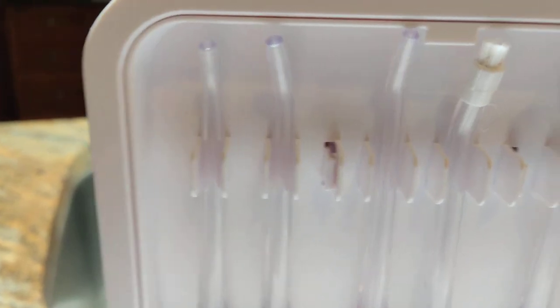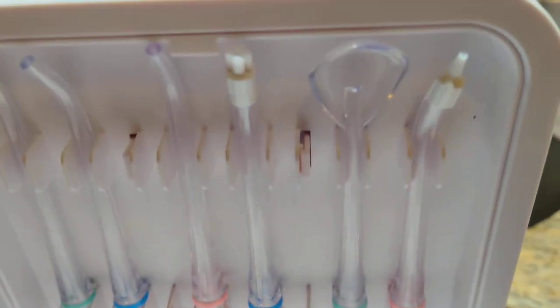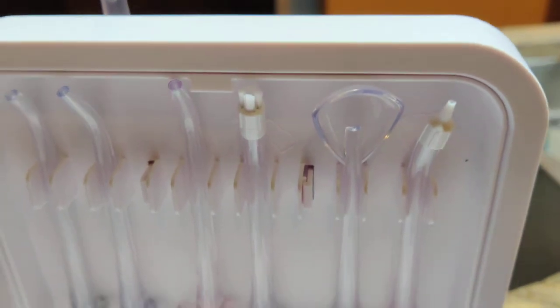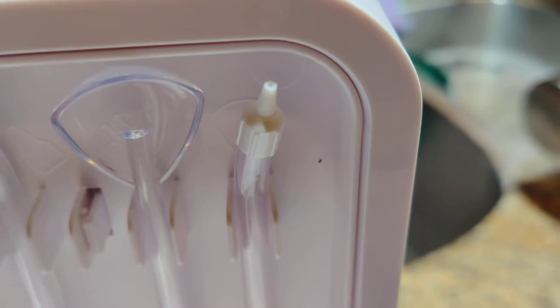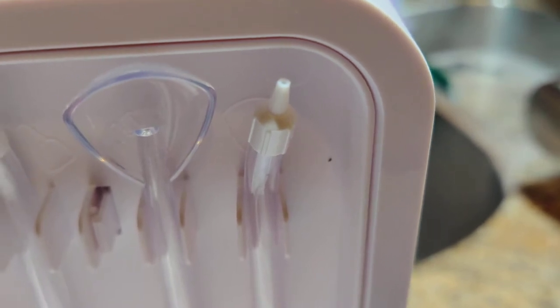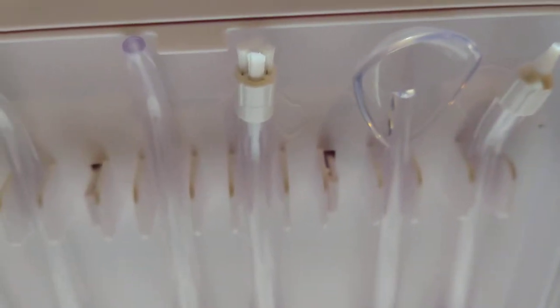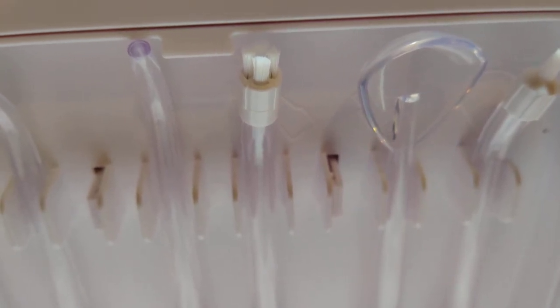You've got a tongue cleaner and you've got one of those ones that gets you down in the gum line. I don't even remember what the name is, but that cleans in the gum line, and then you've got a brush that you can use for helping to get in between teeth.